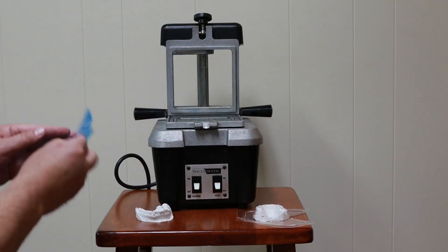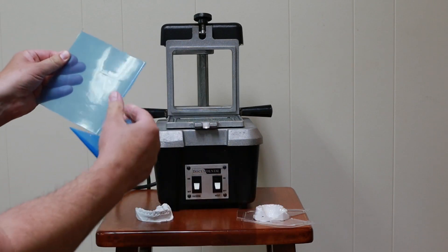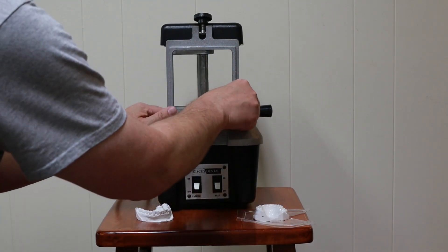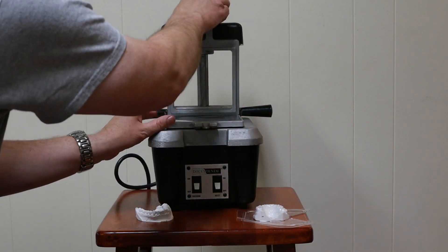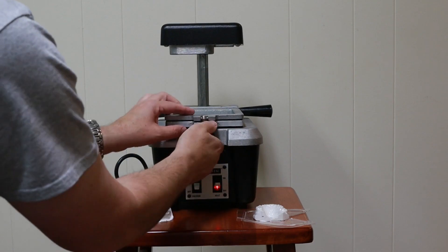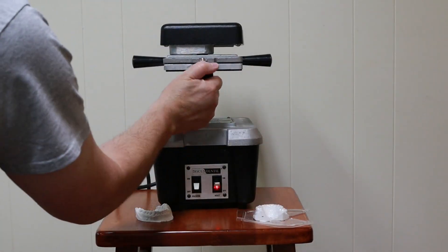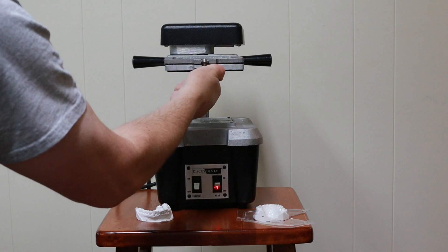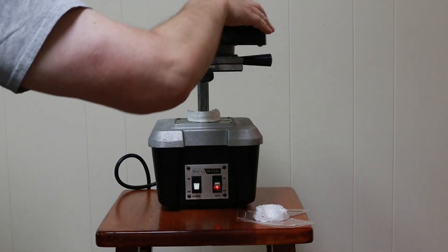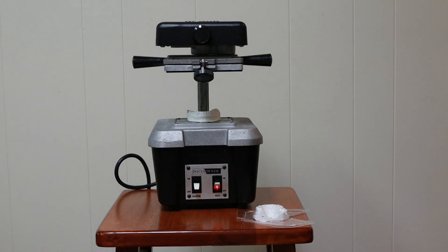Let's do the same thing on the other side for the bottom. Insert the sheet. Turn the heat back on. Lock it in place. Raise it up. Place my model. Rotate the heat. And now we give it a minute or two to warm up the plastic sheet.